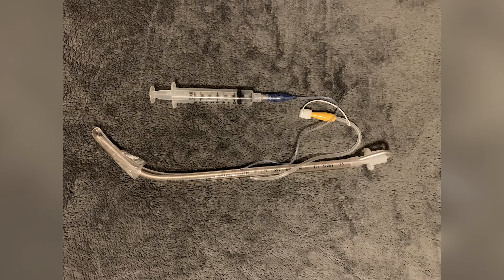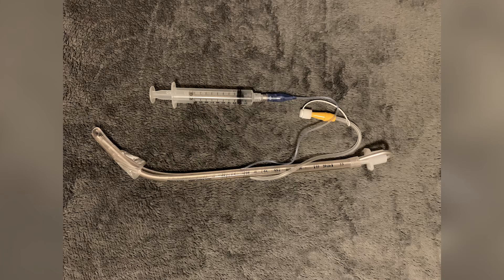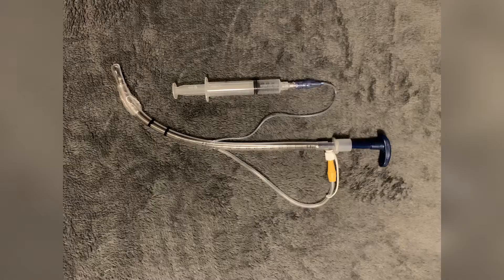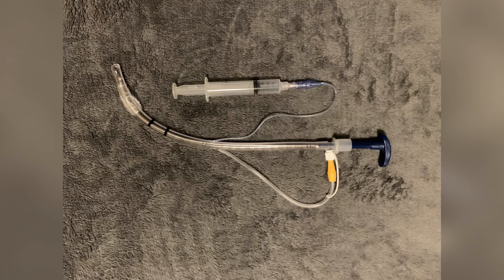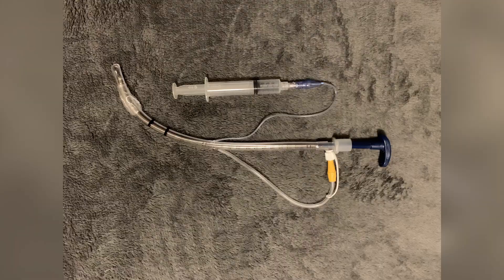Here is the older endotracheal tube with the malleable stylet inserted and the bend put into the bottom portion of the endotracheal tube for use during direct laryngoscopy. Here is the new endotracheal tube with the high-angle GlideRite stylet inserted into it in preparation for intubation.